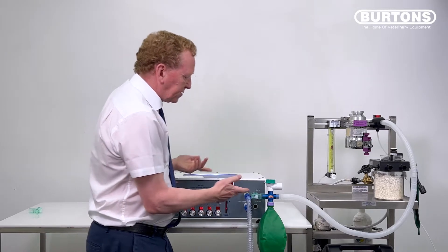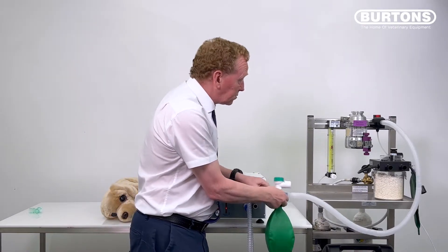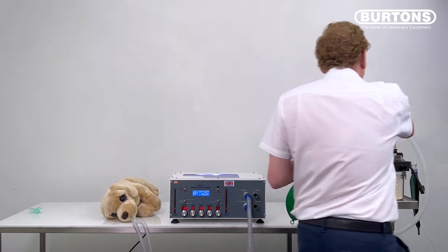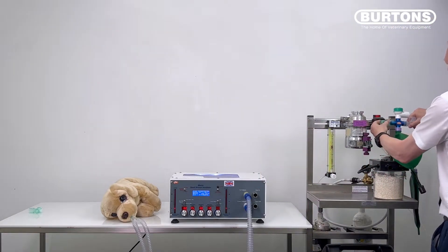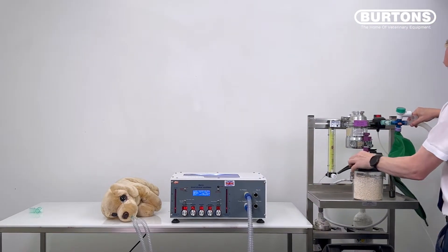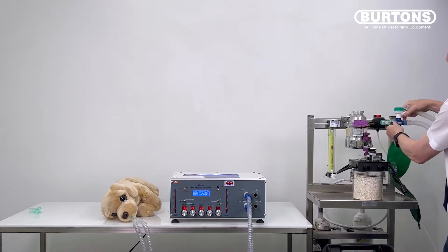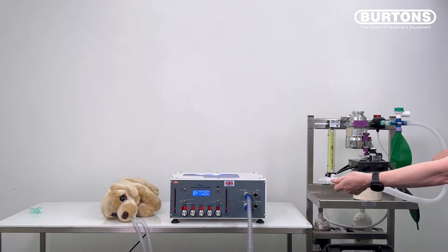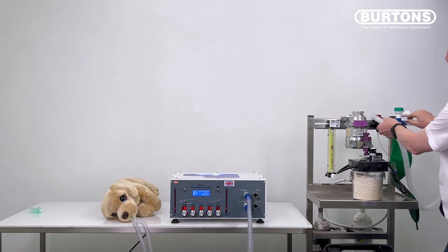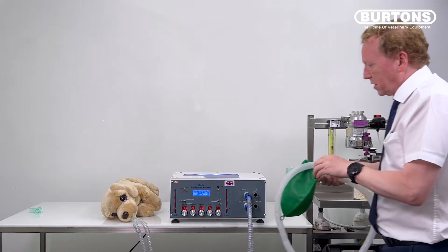Do bear in mind that it doesn't have to be here. We can have the same result by having this connected at the anaesthetic machine. So we could put it like that and feed that to our machine and have exactly the same result. So that's the non-rebreathing setup.